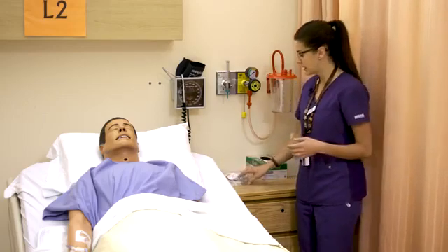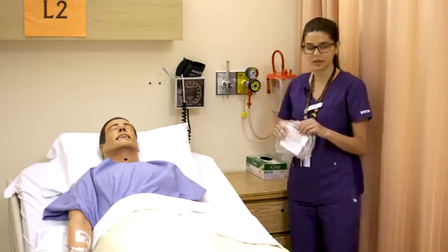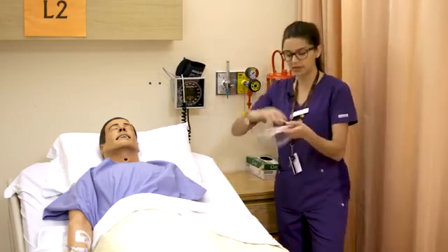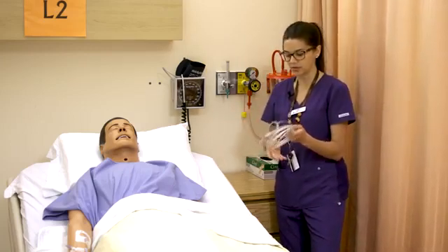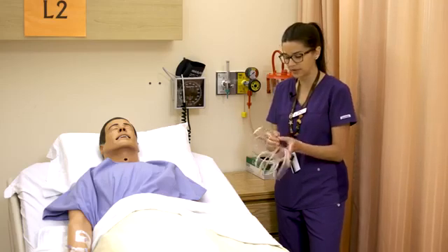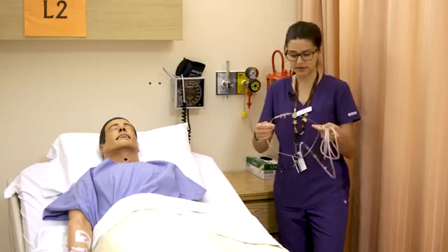Starting with basic nasal prongs — also called nasal cannula — they can go anywhere from one to six liters per minute and deliver an FiO2 of 24 to 44%. They come in a bag and are per-patient use, so you wouldn't want to share them; they just get thrown out when the person is done. They come usually coiled up like this, and while they may look slightly different at different facilities, nasal prongs are roughly the same.